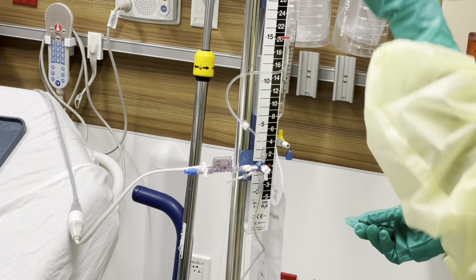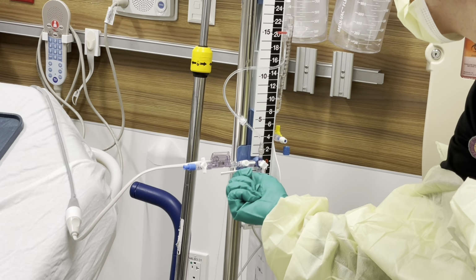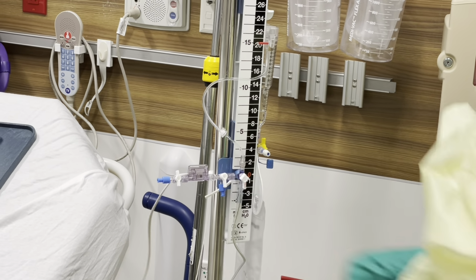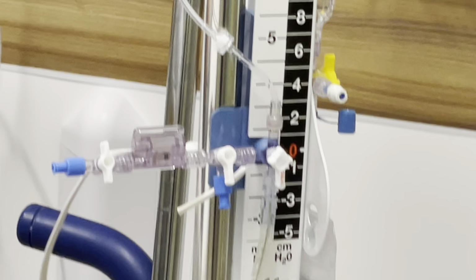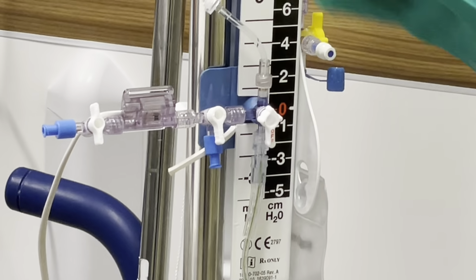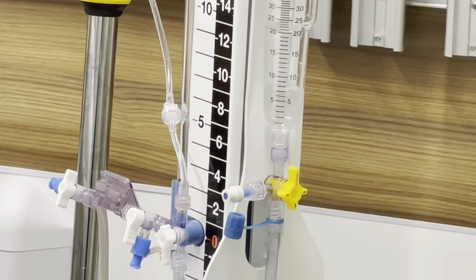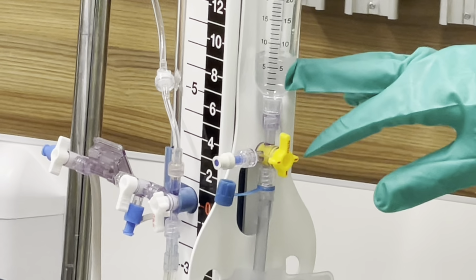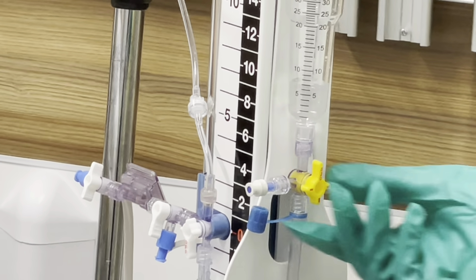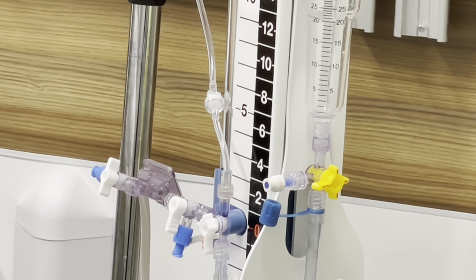Once you hear your second beep, see your zero show up, you're going to put this cap back on. At this point, now you're going to turn it down. So that's ready to transduce now. Your transducer is all ready. So before you start messing with any of the stopcocks to your patient, you're going to look at your drain system, where we just flushed our sterile saline. All of this is sterile saline. It's not CSF. It's not to be accounted for. That's something that we did. So we're just going to empty it, dump it right into the bag, okay?